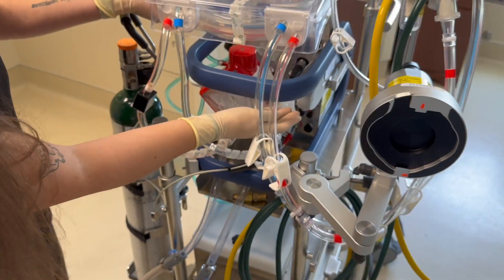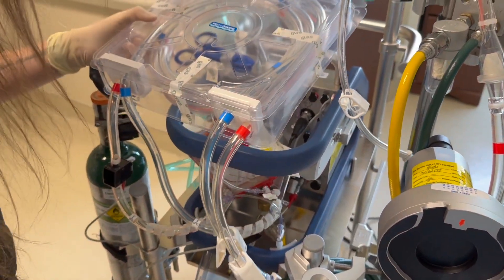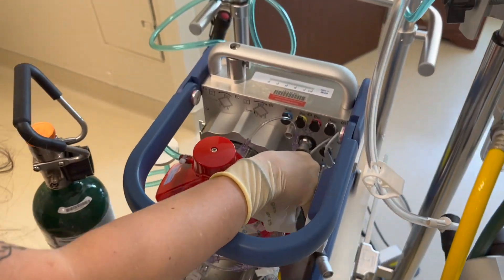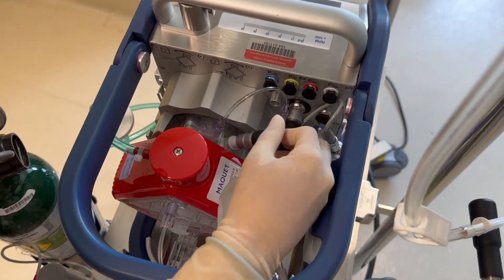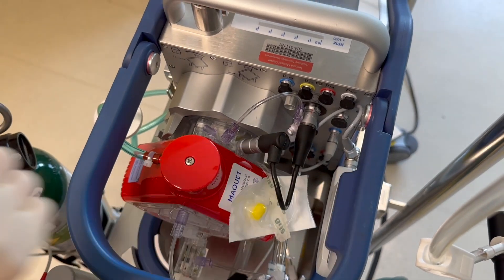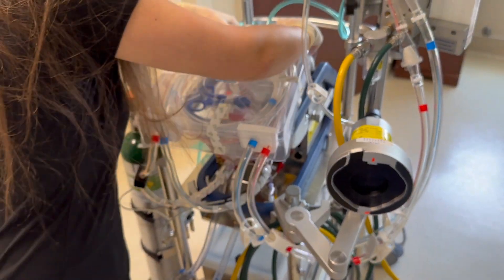The last thing — you're going to wait to put your venous probe on; you do that whenever you're planning. You're going to put your other sensor here, at the top of your oxygenator right here. It can only go in one way. That is now ready to prime.